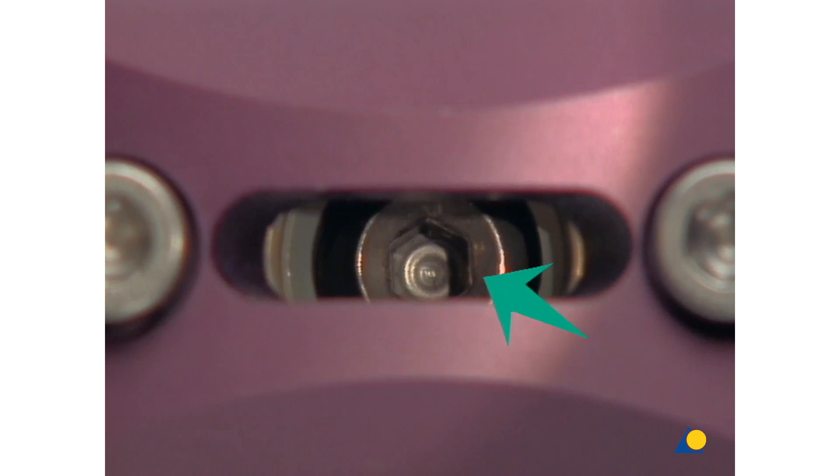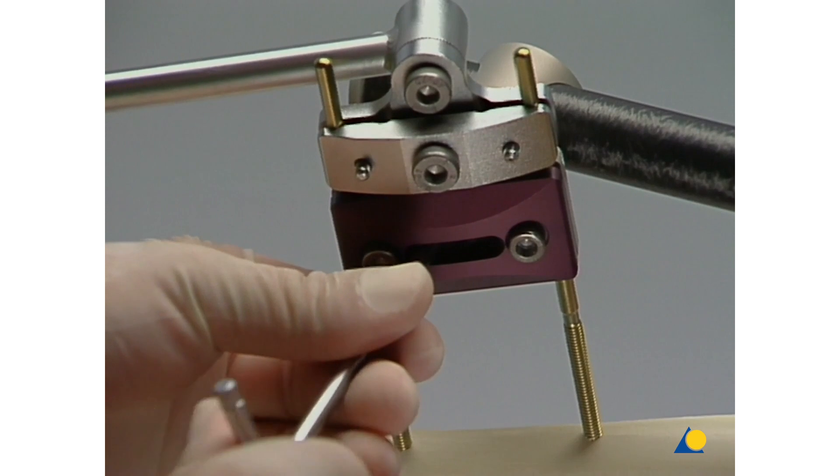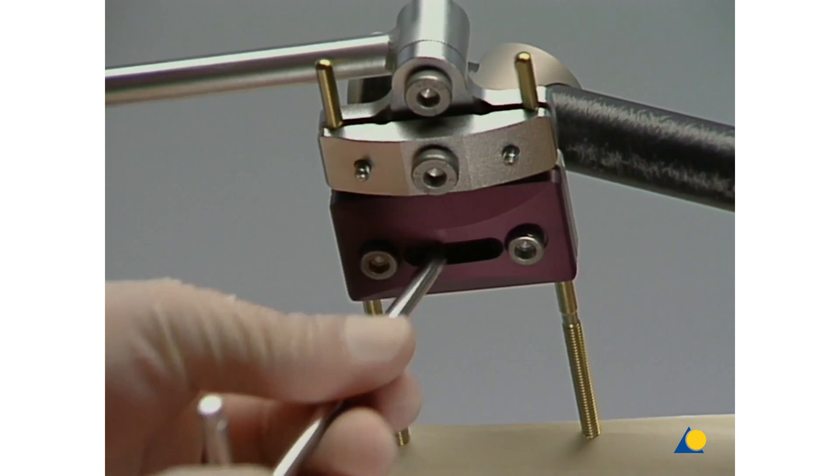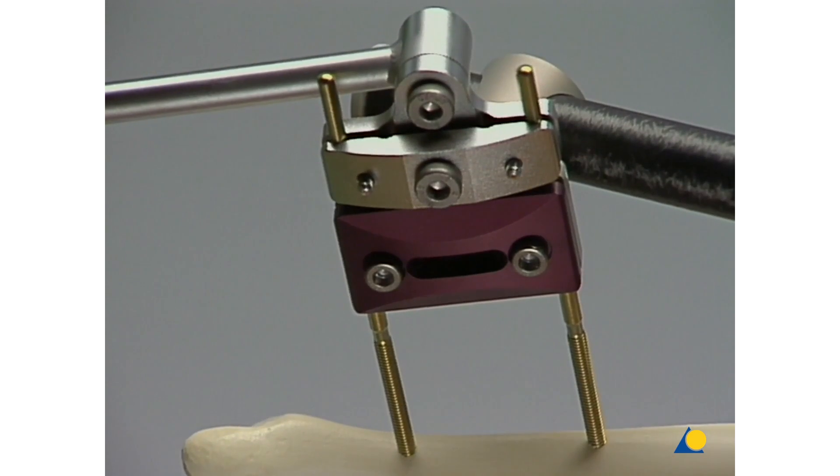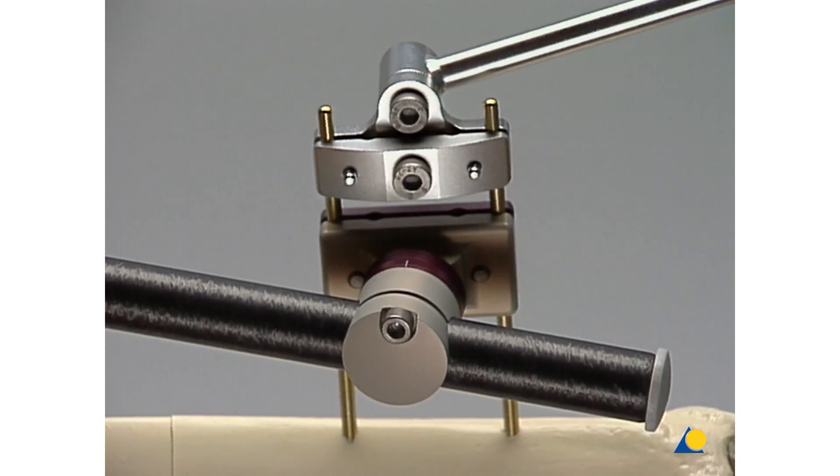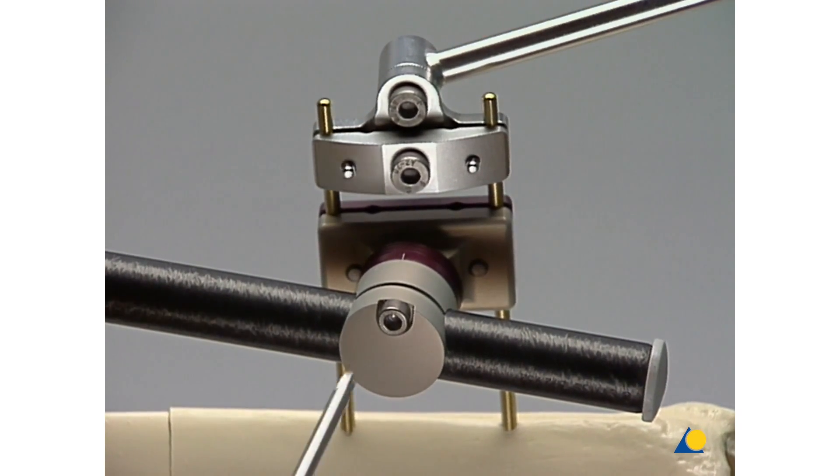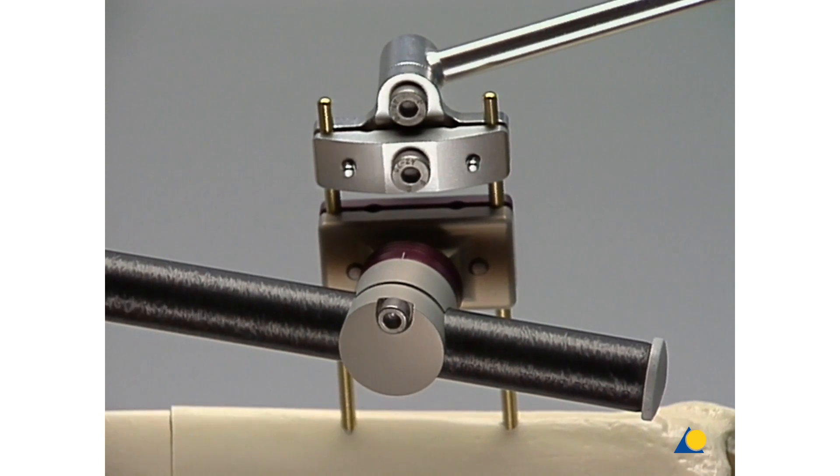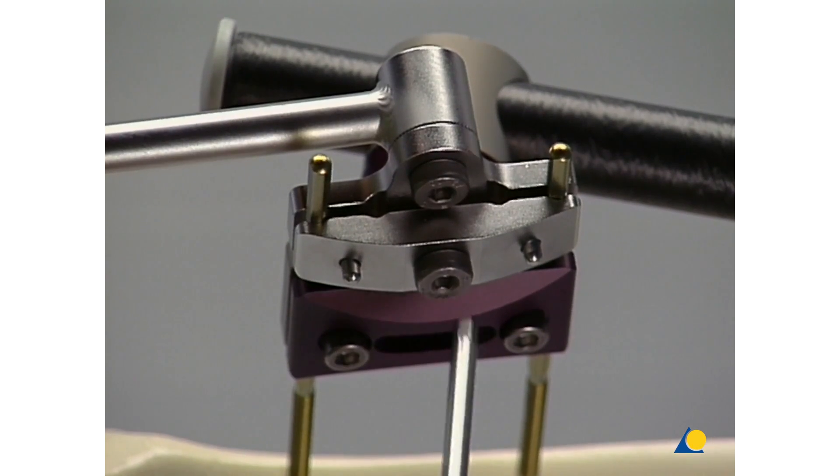The central screw is located in the slot-shaped opening on the standard clamp. The other screw is on the gray main body of the standard clamp through which the carbon fiber tube is placed. The reduction grips are removed.